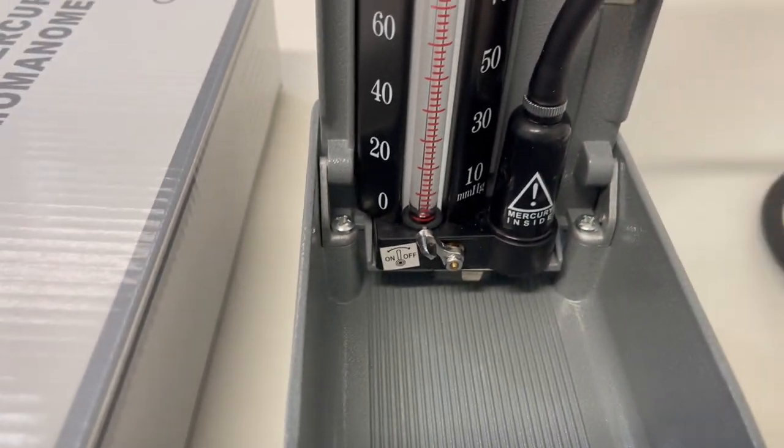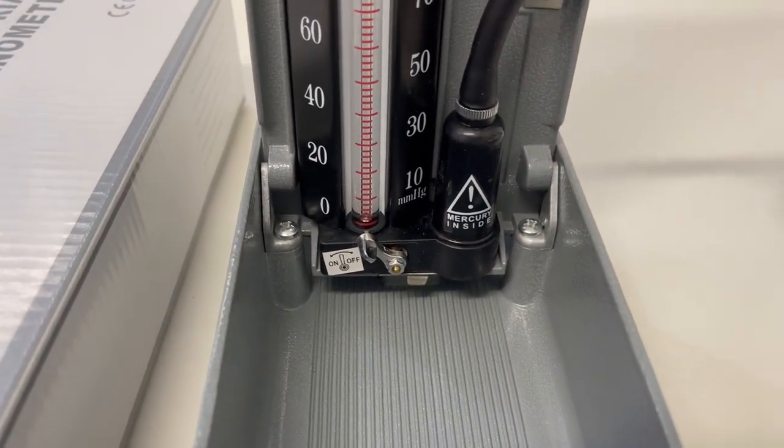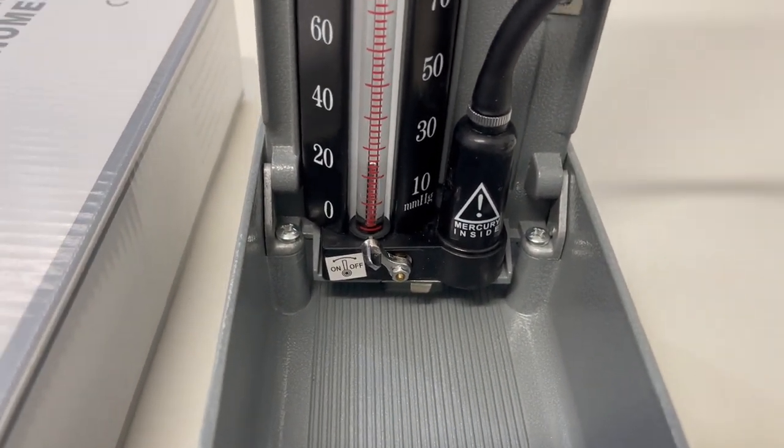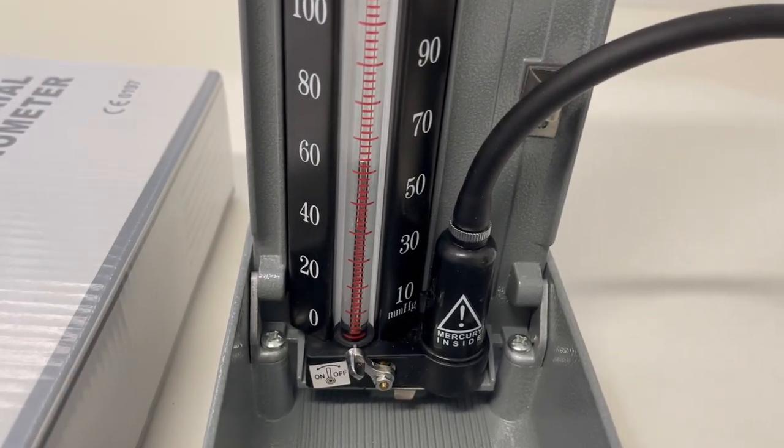As you can see, as you inflate you'll see that it should rise without any gaps in the mercury.